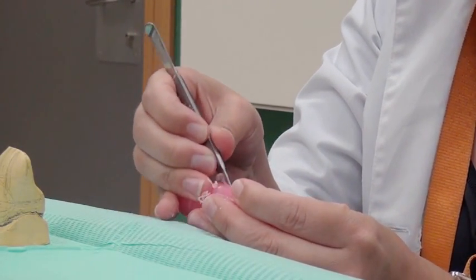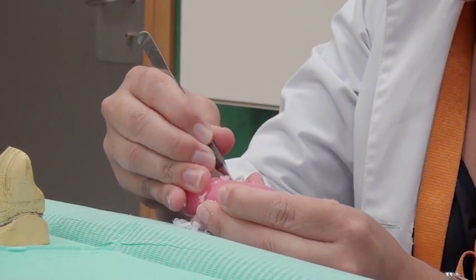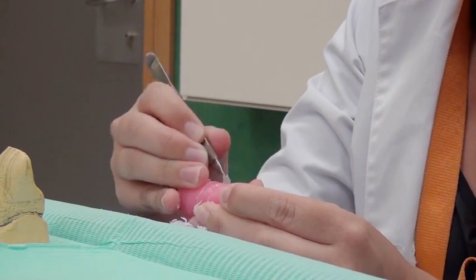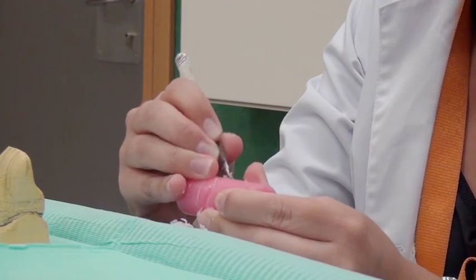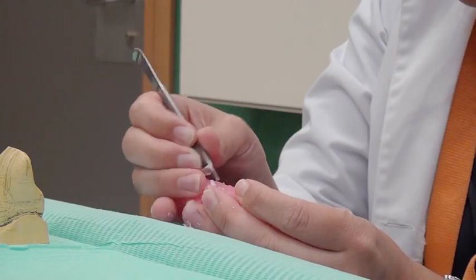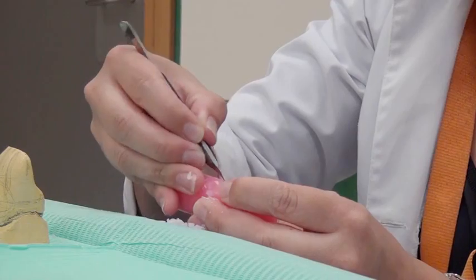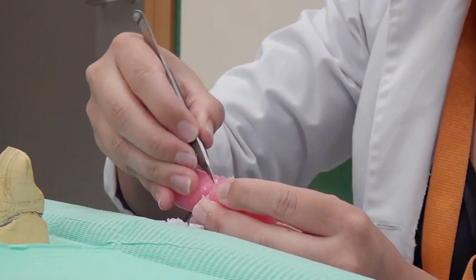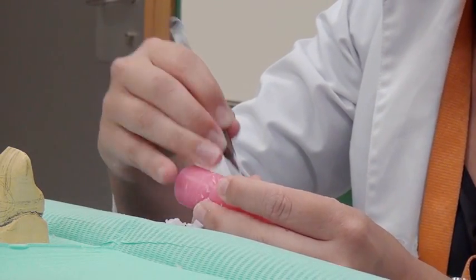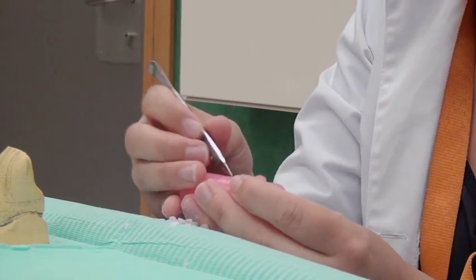The cervical third is carved by progressively removing wax from the entire contour, insisting on the mesial and distal areas, shaping the upper top of the cylinder.